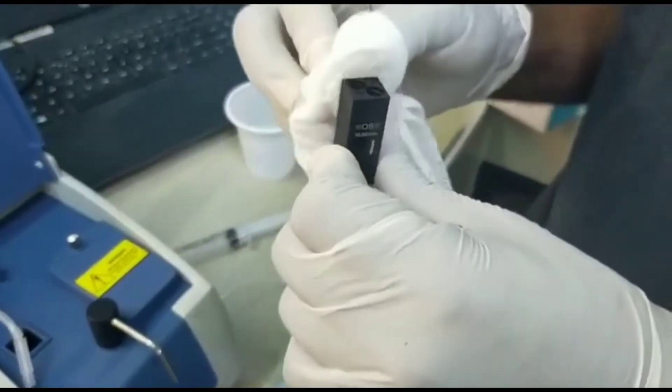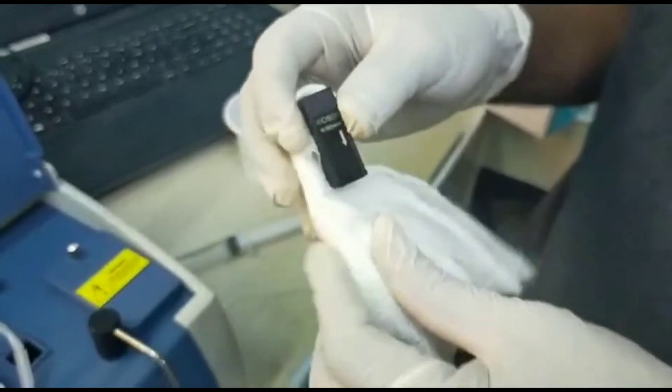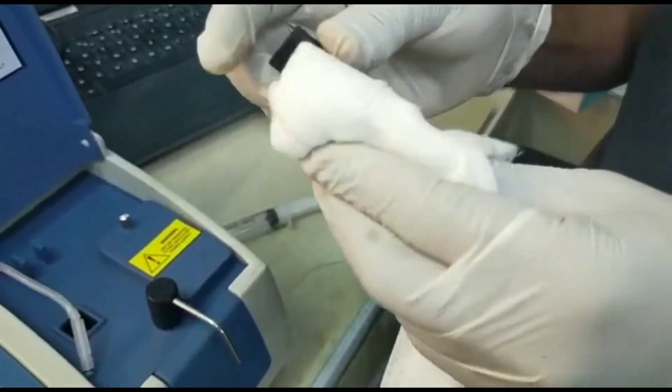Take gauze to dry the flow cell, make sure no water is on the flow cell.